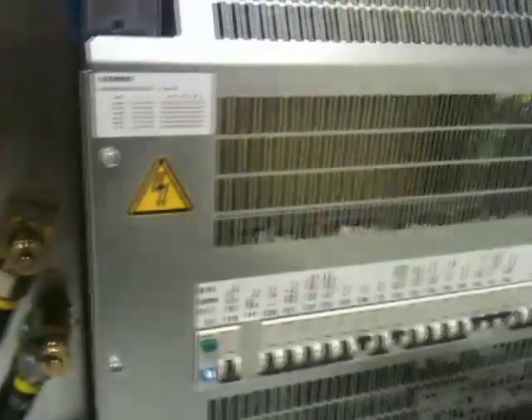There's a main input, a transformer in the background, and a big bunch of circuit breakers for all the different components. There's some sort of interface board, and a signal processor that seems to be generating RF references for the transmitter. A variety of control signals go out via coax cables, and there are various communication buses — I can see a CAN bus, a couple of ethernet ports, a control computer, and a big bunch of interface cards outputting fibre optic cables to all the various components in the scan room.